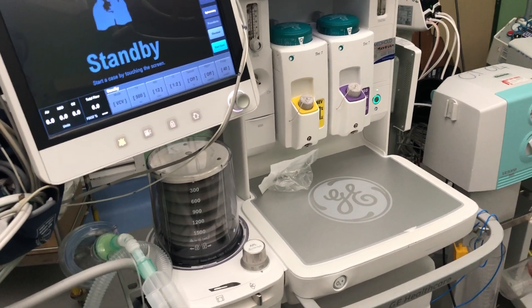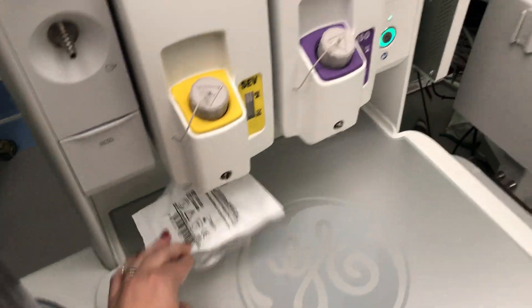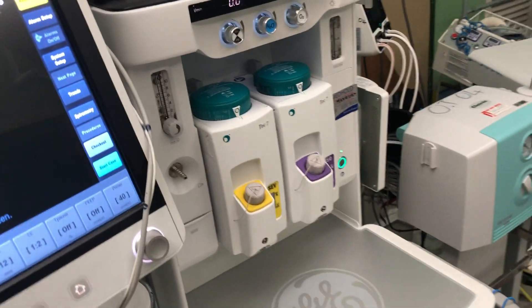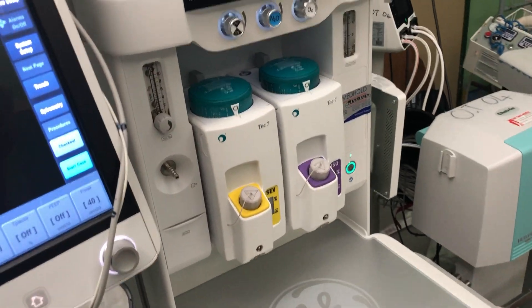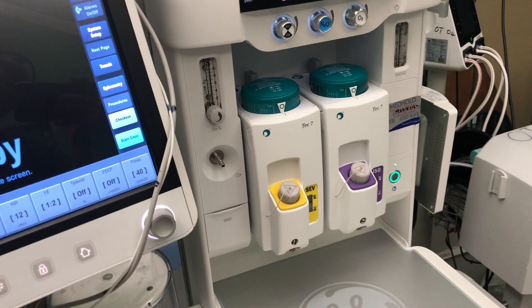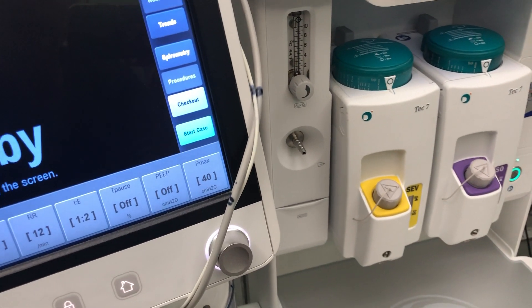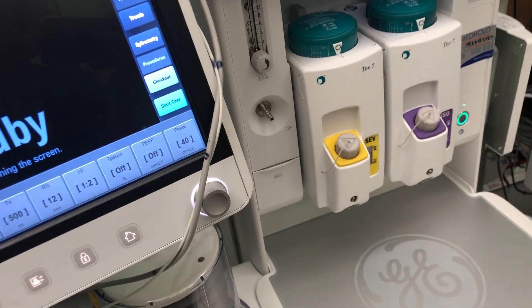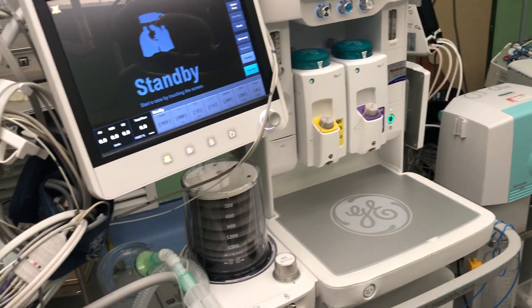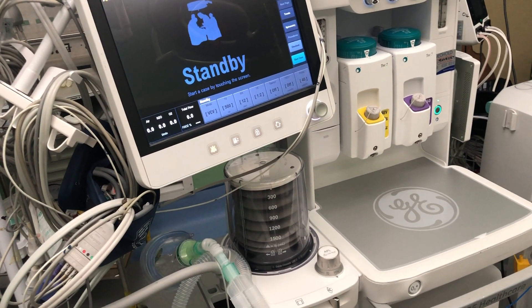This is an example of an anesthetic machine, manufactured by GE — the Care Station 650. There are a lot of different makes and models of anesthetic machines, but all anesthetic machines have the same features. The purposes of the anesthetic machine are to ventilate the patient, to administer inhalation agents or gases, and to monitor the patient.